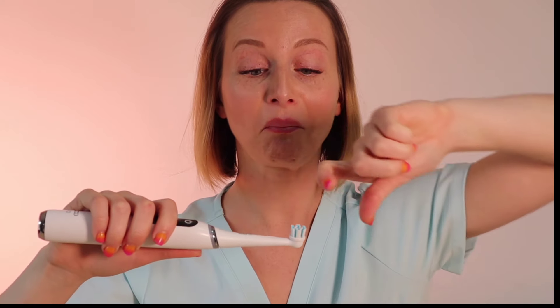First thing I do is I just put some toothpaste on my toothbrush and spread it all around my teeth. Notice that I'm not actually using toothpaste in this demo — I just want you guys to actually see my teeth so the toothpaste doesn't get in the way and get all foamy, but you definitely can and should use toothpaste when you're brushing your teeth. After I've spread the toothpaste all around my teeth, I get started.